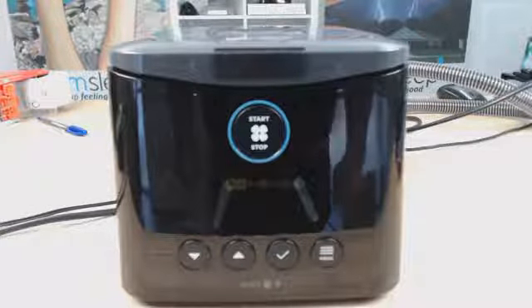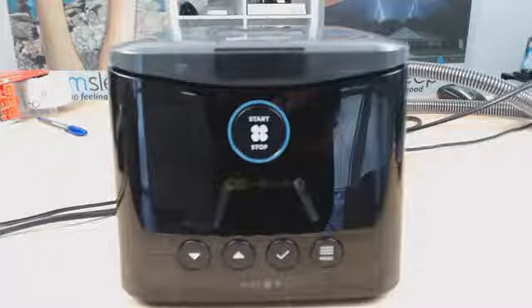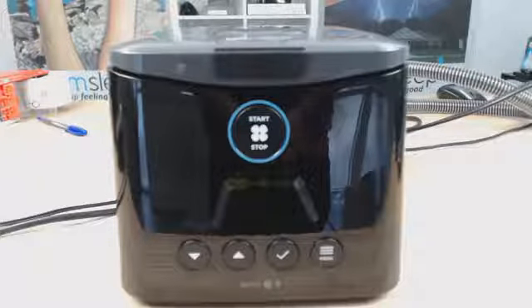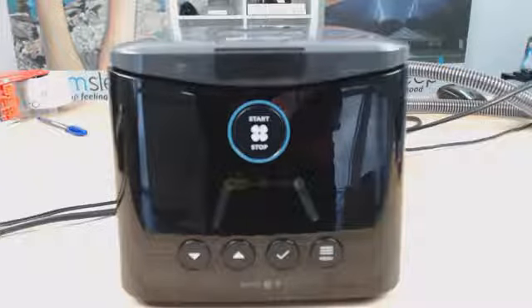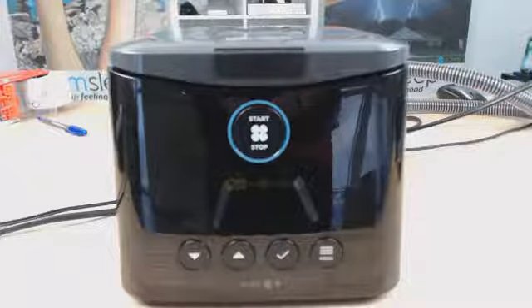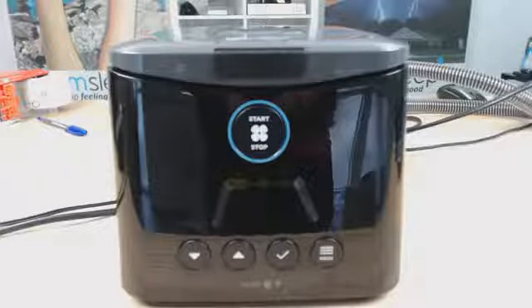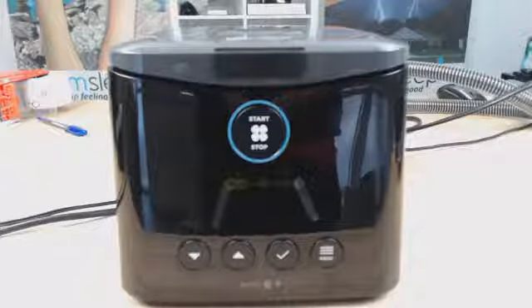Thanks for tuning in to part 3 of our 3-part series on the new Fisher & Paykel SleepStyle device, where we will be going through what's known as the clinical settings. Now, for those of you that don't know, the clinical settings are one step above your patient settings, and it's in the clinical settings that we are able to change things such as the CPAP pressure, the upper and lower limits of the auto-adjust pressure, and a few more advanced setup features.